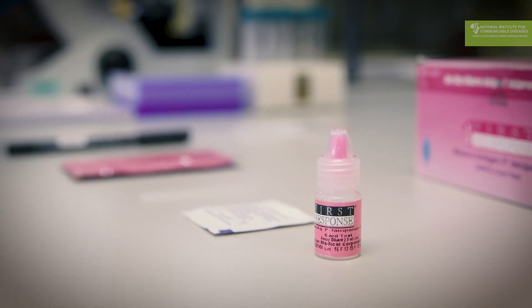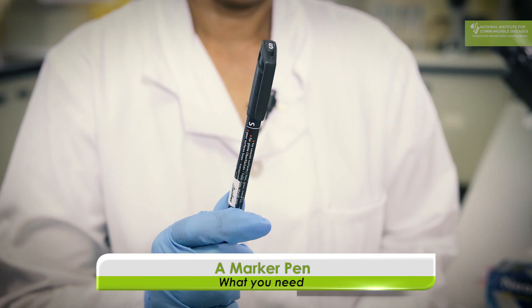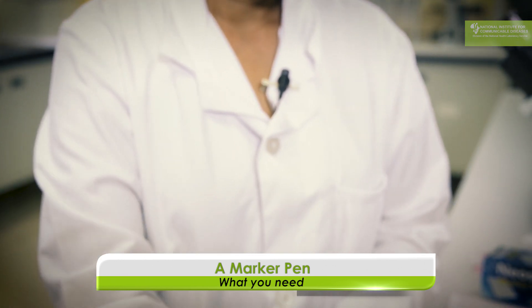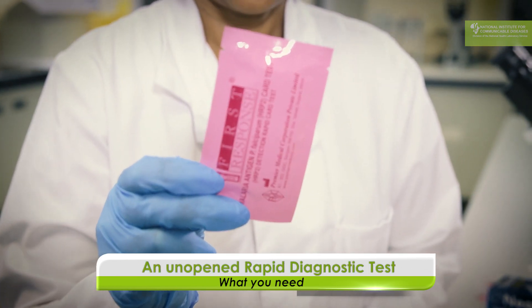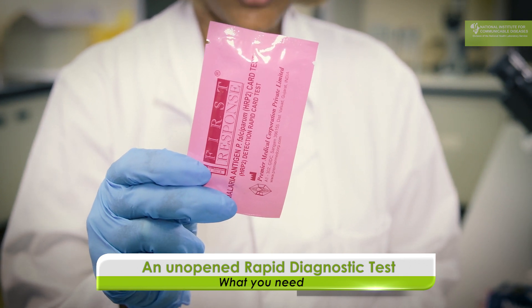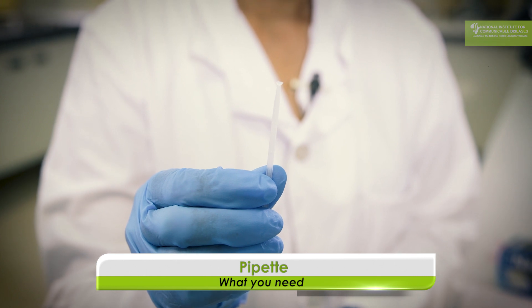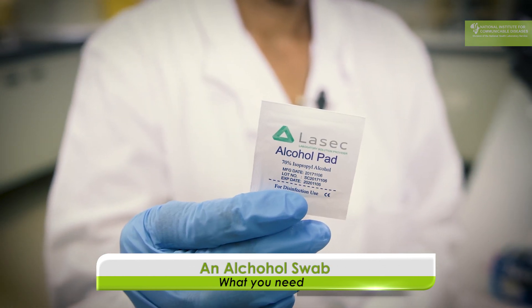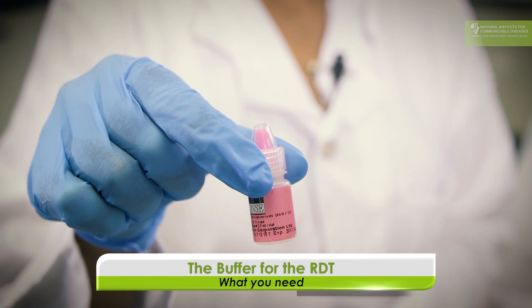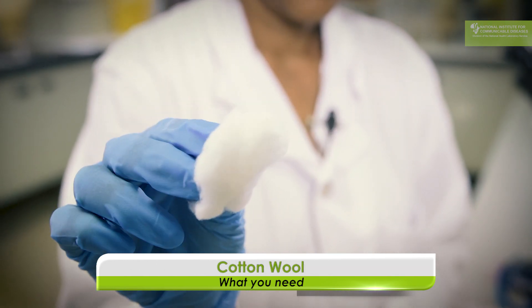The rapid diagnostic test consists of many different components. You need a marker pen to write on your RDT, an unopened rapid diagnostic test in a sealed foil pouch, the blood pipette for the sample, an alcohol swab, the buffer for the RDT, the lancet, and some cotton wool.